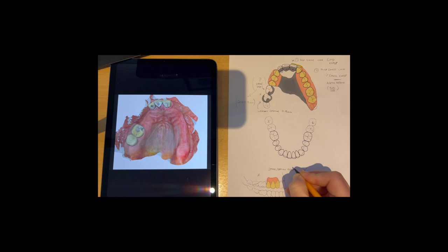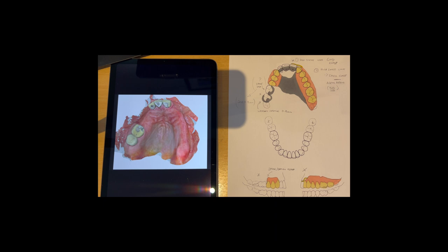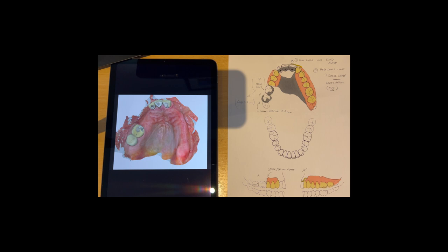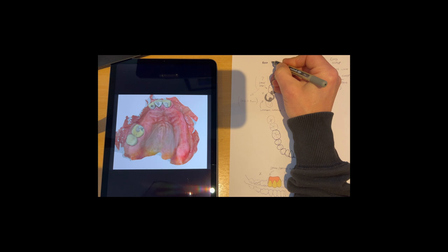So that's pretty much our design sorted. Just to emphasize various things, I just can use a black pen. So that's the job done, thank you.